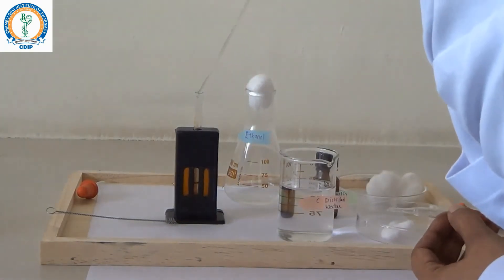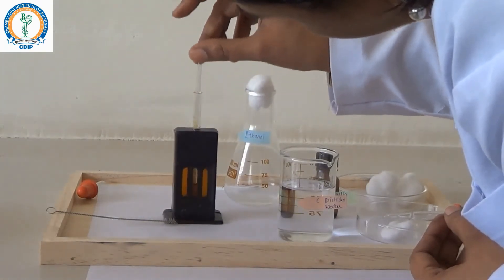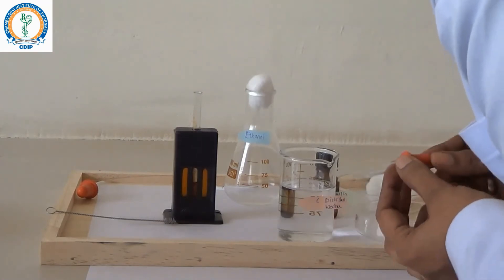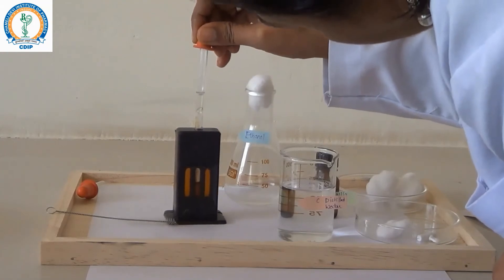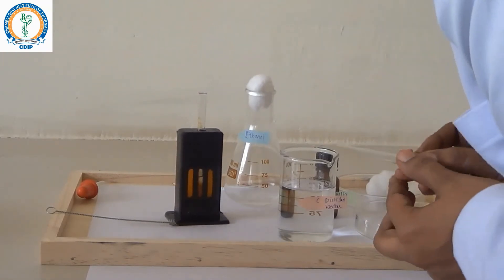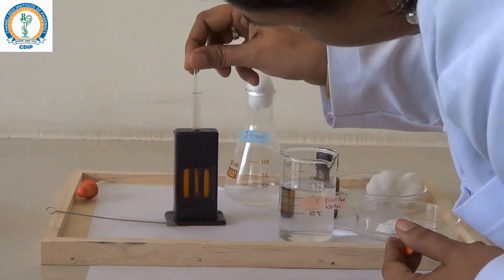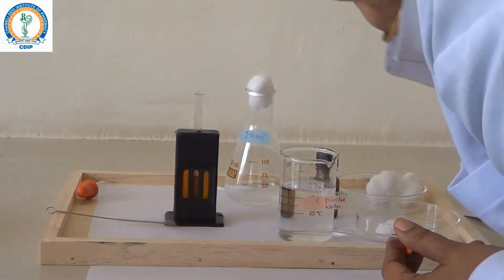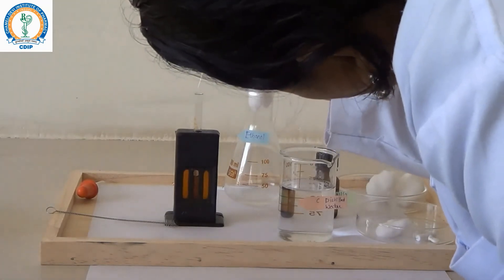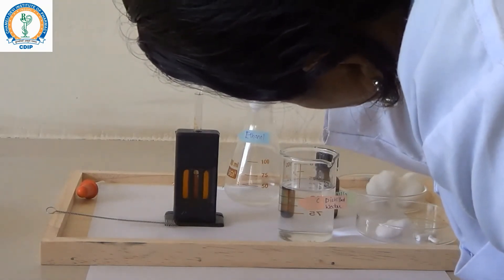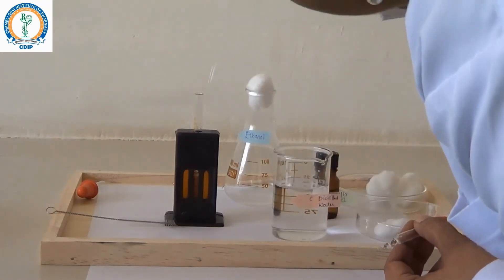Intermittently mix the whole content with glass rod for consistency. Always carry out the experiment in light. Continue adding distilled water till the color of the tube matches with the given comparators.